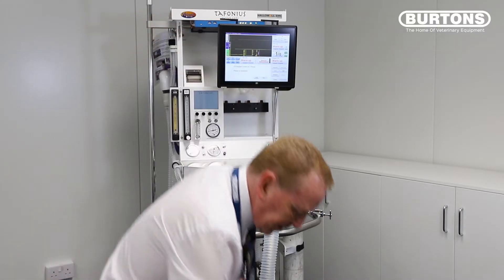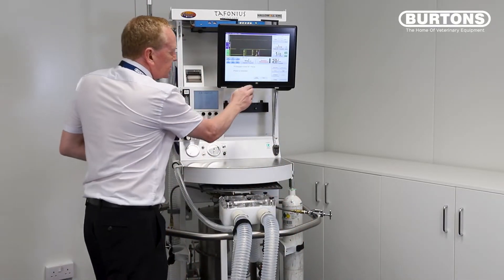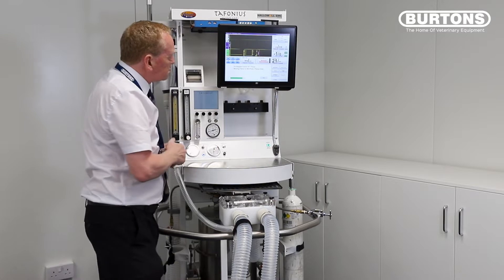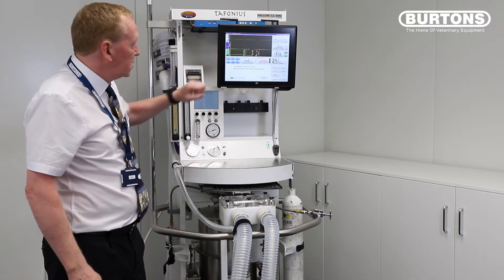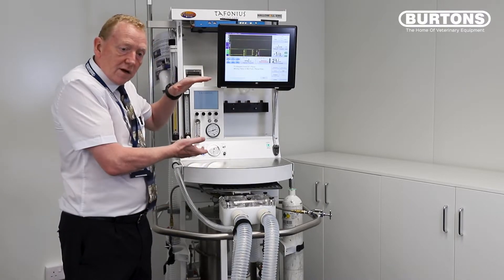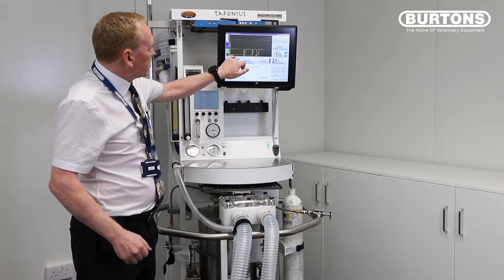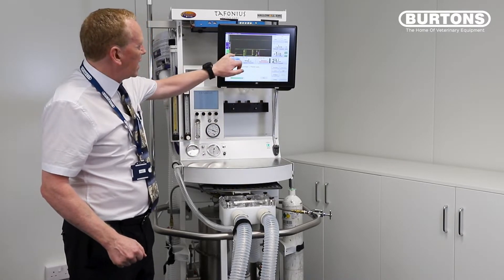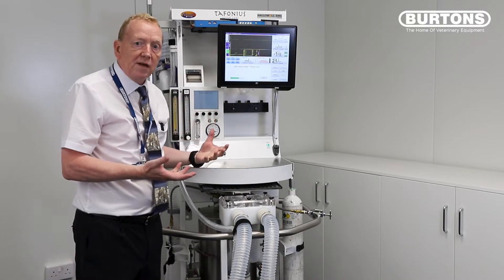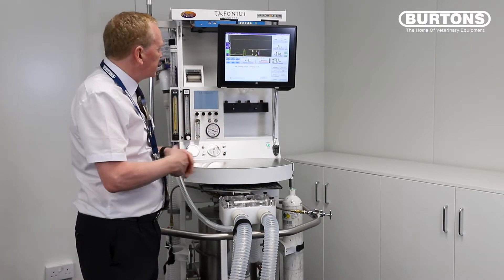The piston's initialized — I'm going to fit the stopper back on and then just push the leak and compliance button. What that's doing now is taking the piston up to the midpoint; it's going to pressurize the cylinder at the midpoint because everything is now closed. It takes the pressure up to about 20 centimetres of water pressure. At about 20 centimetres it's going to measure the leak, and we're going to know the leak at 20 centimetres of water pressure in this system.